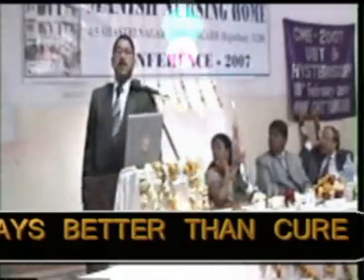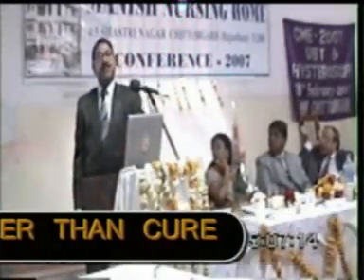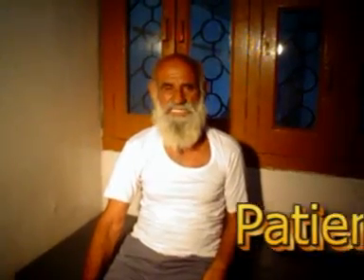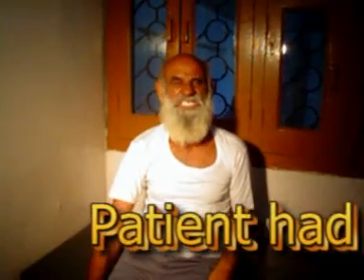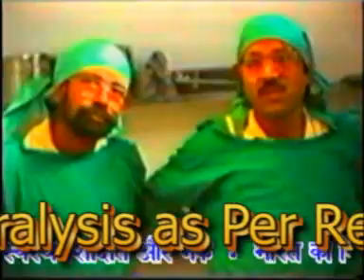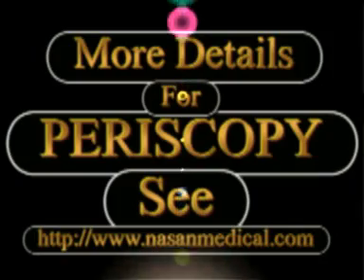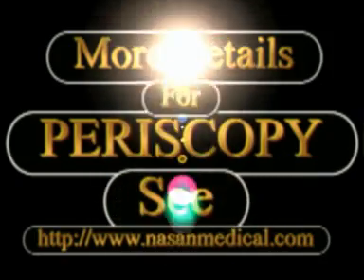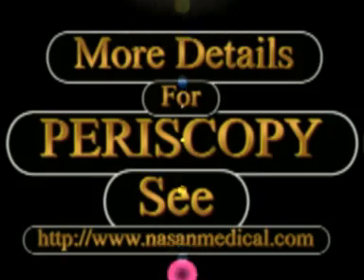total cardiac risk, vascular risk, and atherosclerosis grading. So this is really a system which analyzes heart and brain circulation.